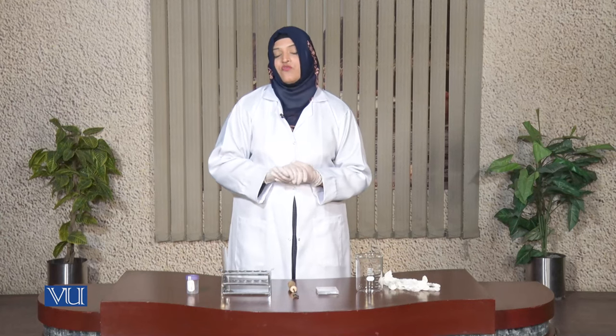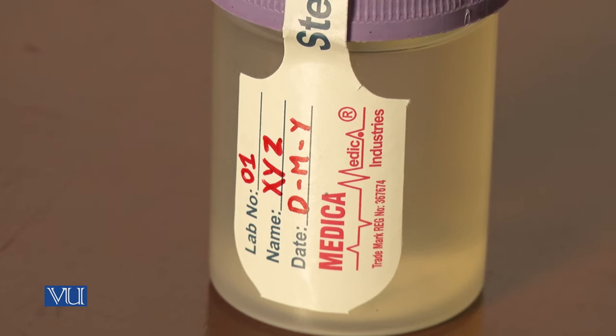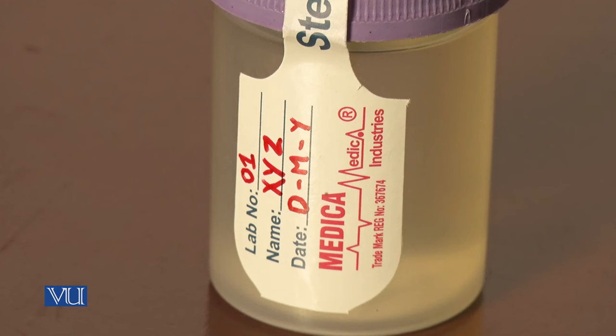If storage of the urine sample is required, it should be done at 2 to 8 degrees centigrade in a refrigerator, and for long-term storage it should be kept at minus 70 degrees centigrade. If you see any particles in the first morning void, prior to analysis the sample should be centrifuged. The container in which you are collecting the urine sample should be properly labeled with the patient's name, date and time of collection, and the lab sample number.